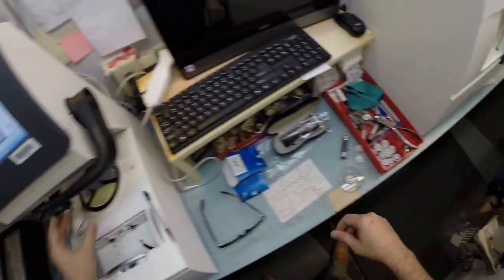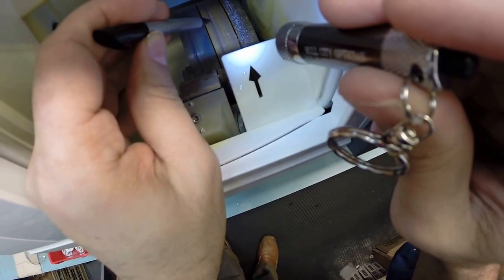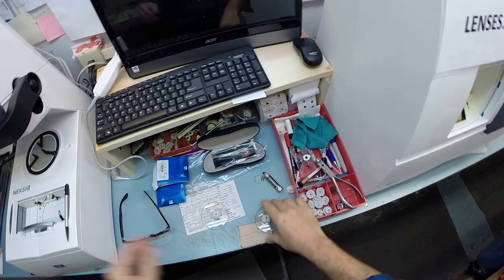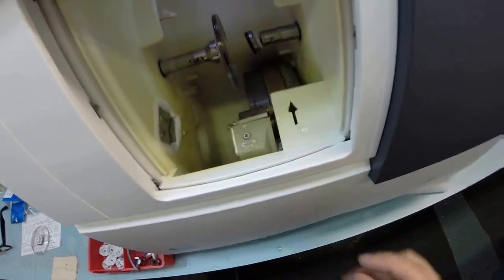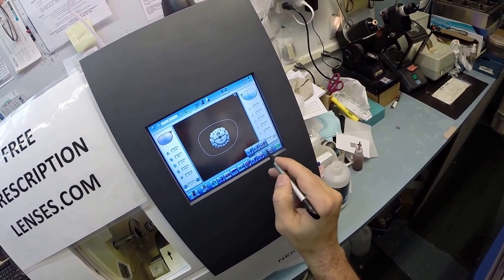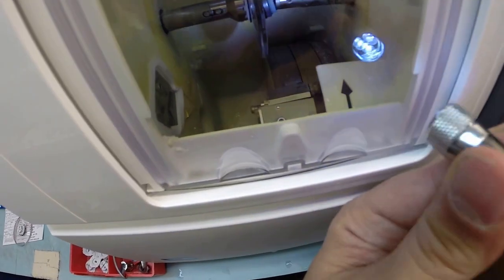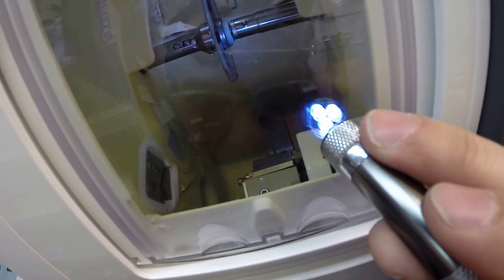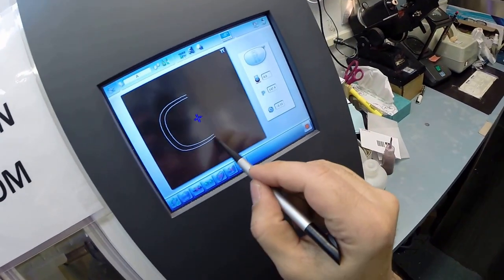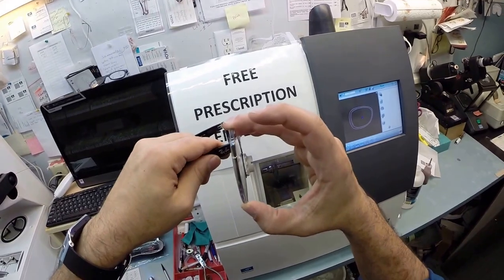The actual cutting wheel is over here on the far right. It's gonna act like heavy grit sandpaper to grind away your lens material. This wheel in the center with that channel will put the bevel onto the lens so it stays inside the groove of the frame. Put the lens into the chuck, pull up the shape on the computer. I'm not gonna polish the lens, just a light bevel on the back, and hit start. The clamp is going to close, then your lens is gonna be traced by two white styluses measuring the thickness at every point to know exactly where to place the bevel.